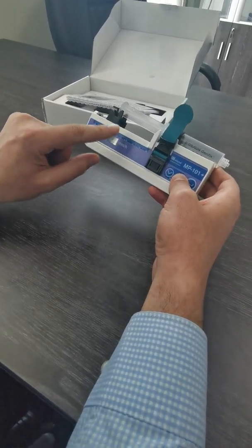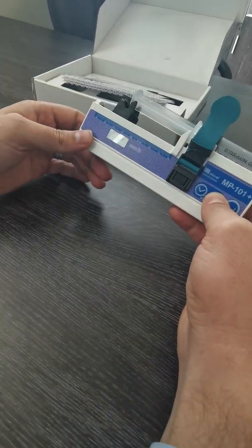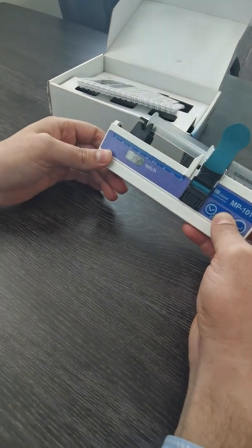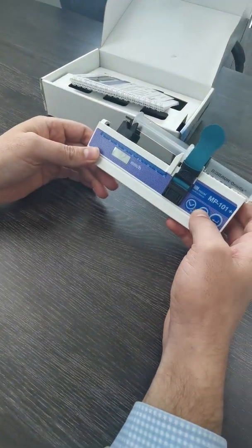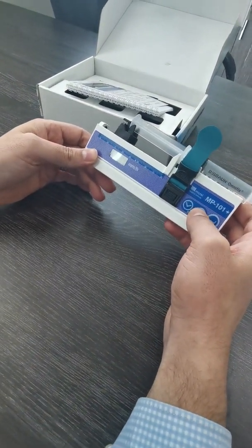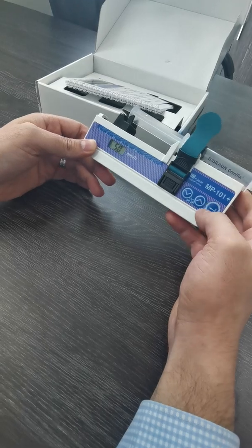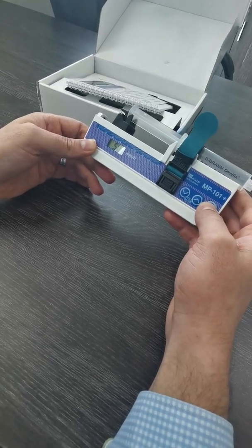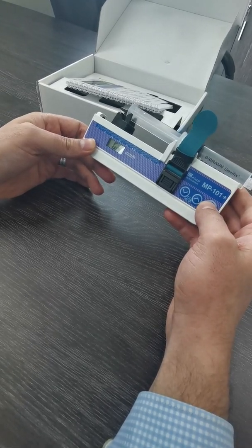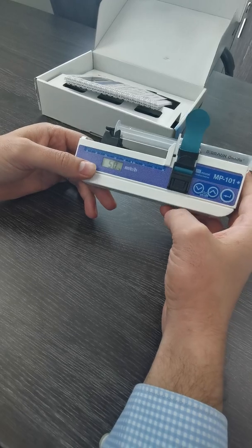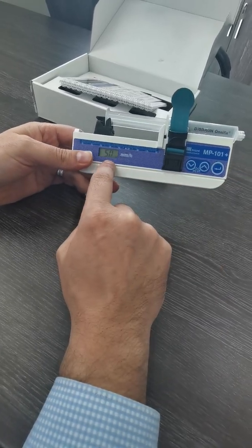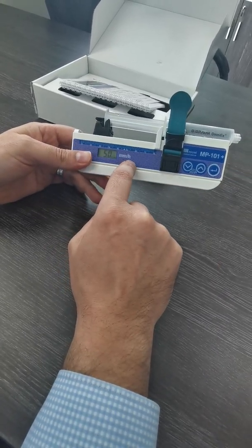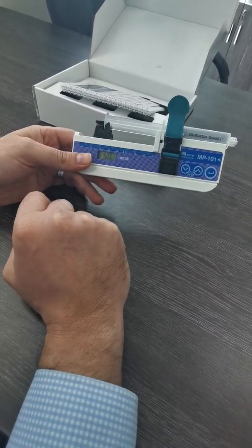So we will put 50, then we'll press and hold the go button, then 50 millimeter per hour will start.